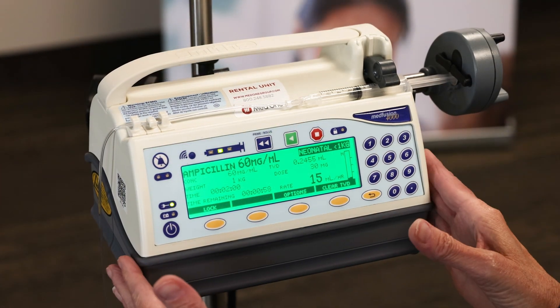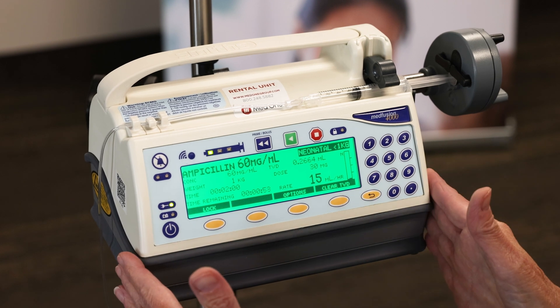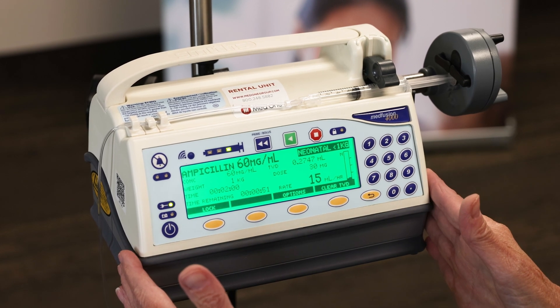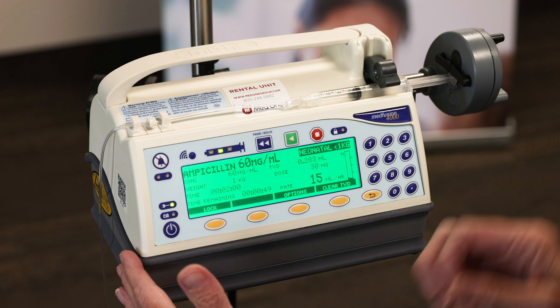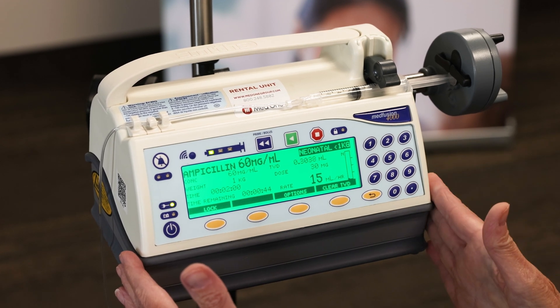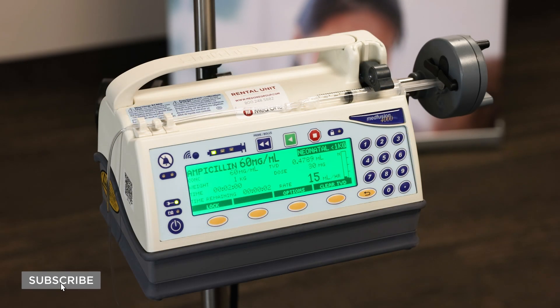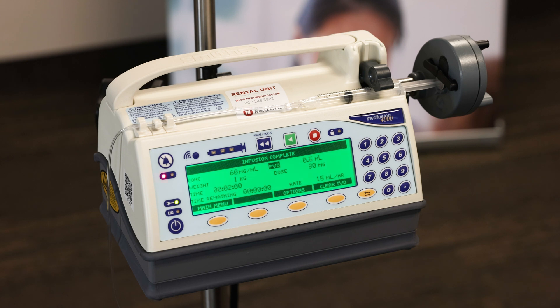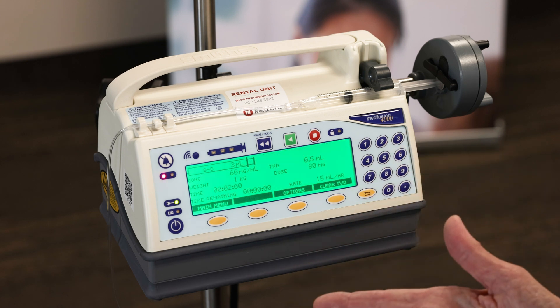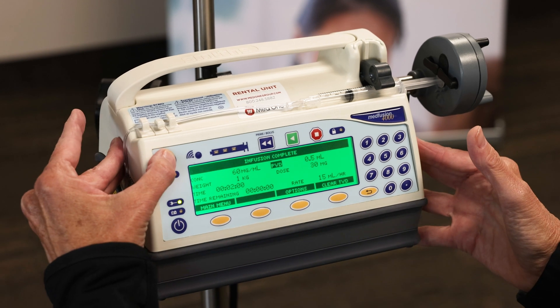I've manipulated the numbers so I can show you what happens when the entire ampicillin infusion has completed. So I'm waiting for the countdown so you can see what happens when we reach the end of our ampicillin infusion. You get the alarm, which is high priority because it's blinking red, so you go over here and press your silence key.